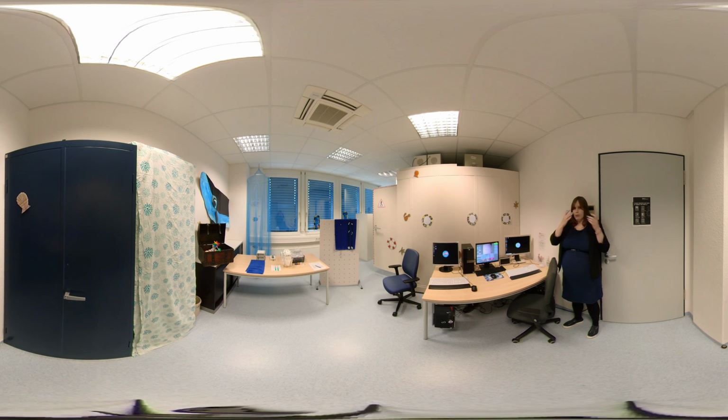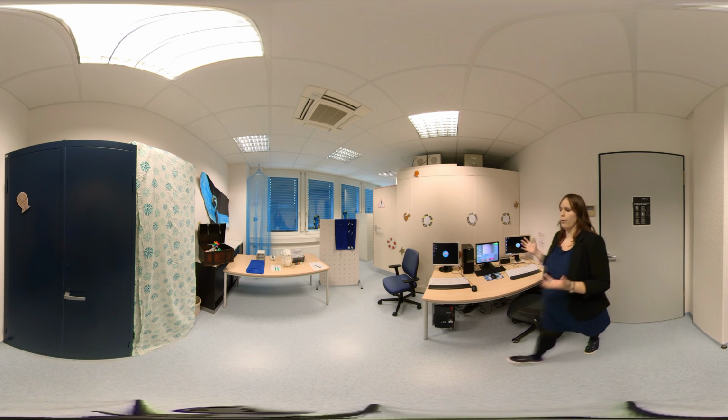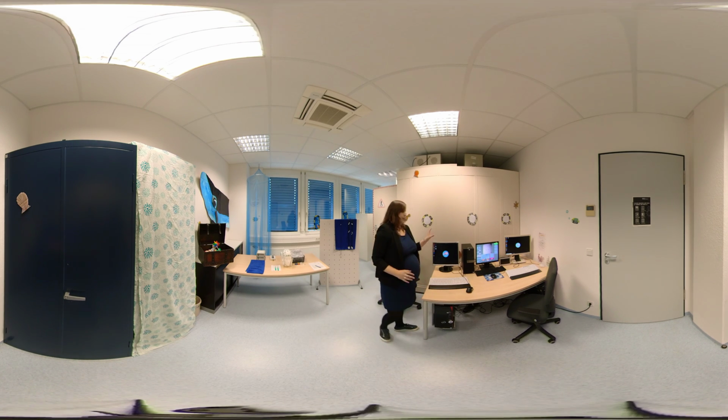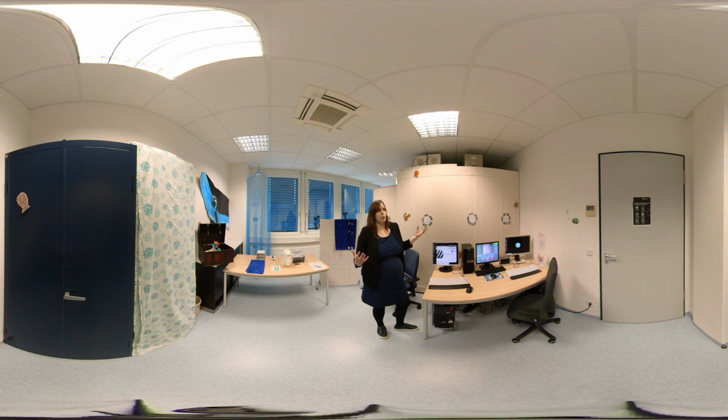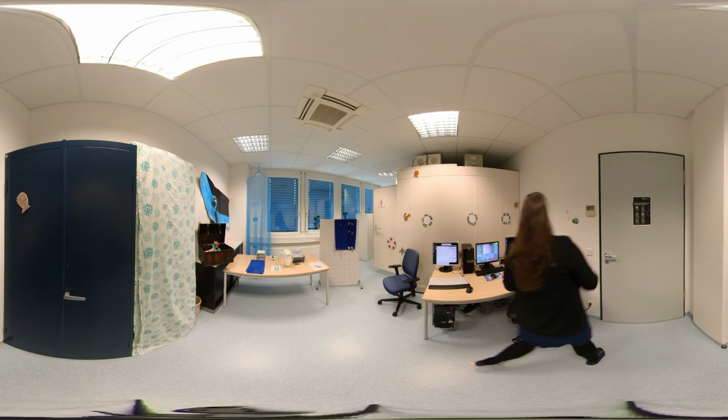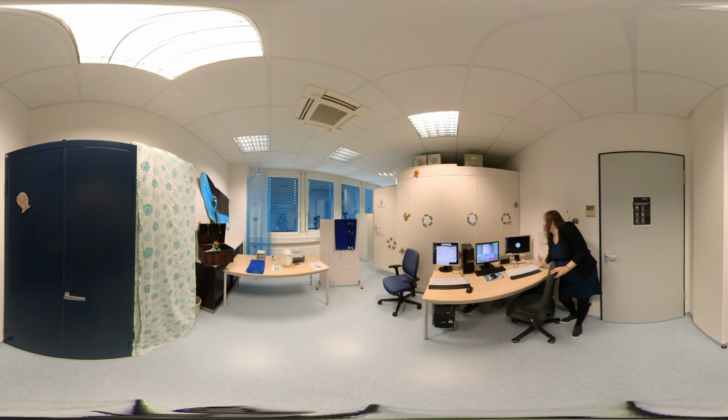Before the participant arrives, we can already prepare a few things in our EEG lab. The first thing is we can turn on our computers. We can then turn on the software we need for stimulus presentation. In our lab, we use Python or PsychoPy to present stimuli with a high accuracy. We can start the eye tracking software on the eye tracking computer, and on the EEG computer, we start the software that we need for EEG recording.